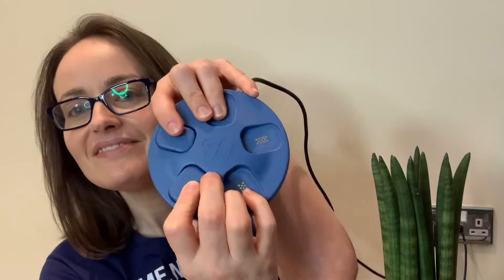The device has this logo of a little butterfly in the middle. Then one of these I take away and stick inside this blue thing on my back. I was really rubbish at putting it on the first time, to be fair.